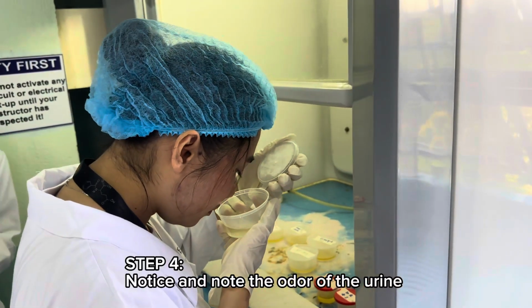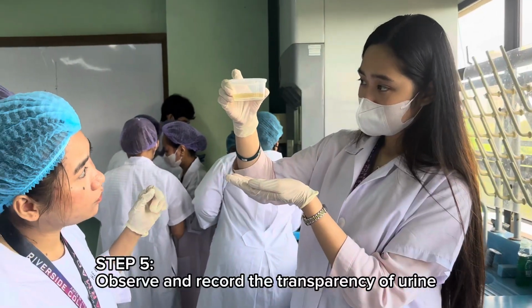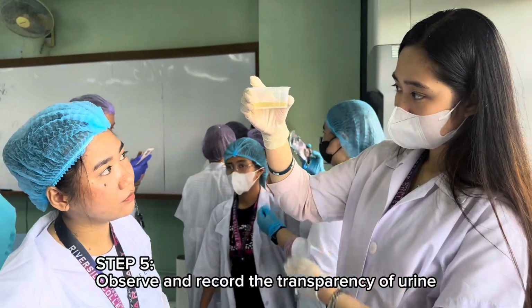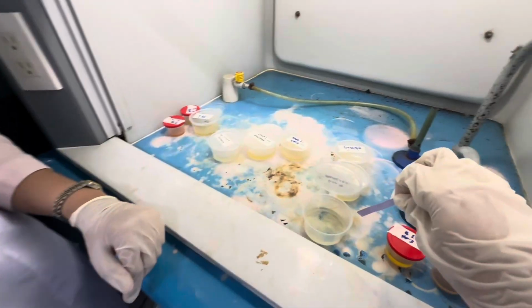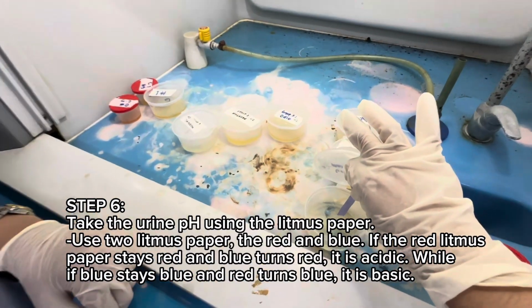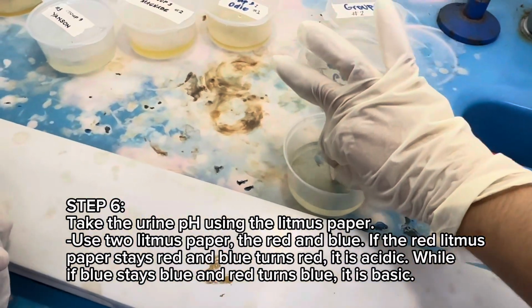Step 4. Notice and note the odor of the urine. Step 5. Observe and record the transparency of urine. Step 6. Take the urine pH using the litmus paper. Use 2 litmus paper, the red and blue.